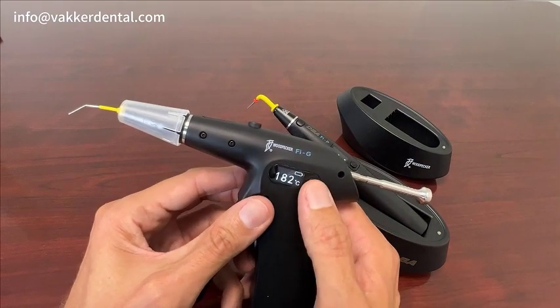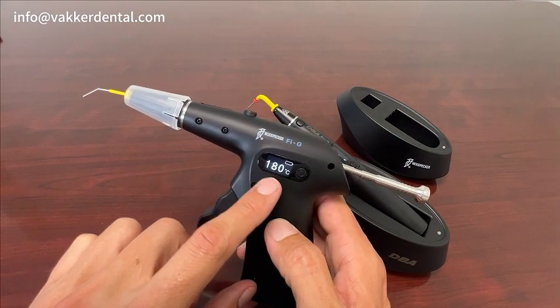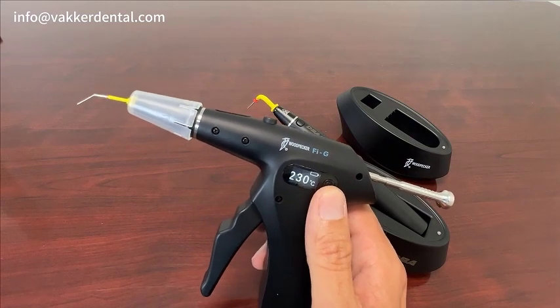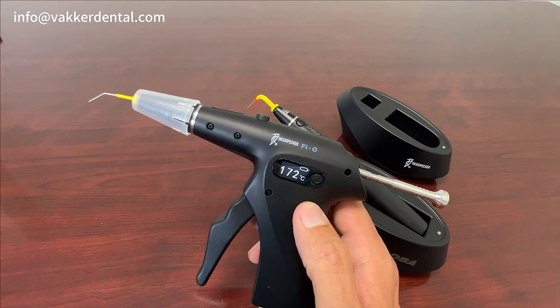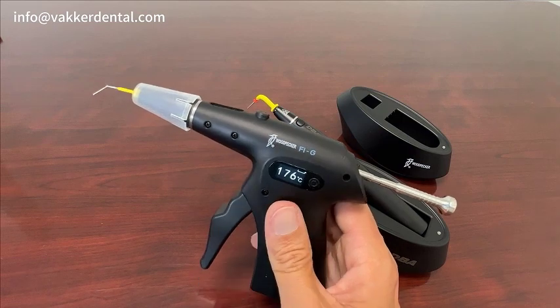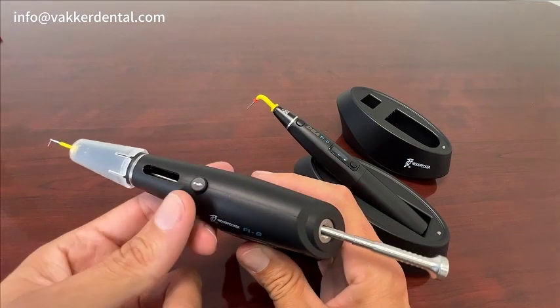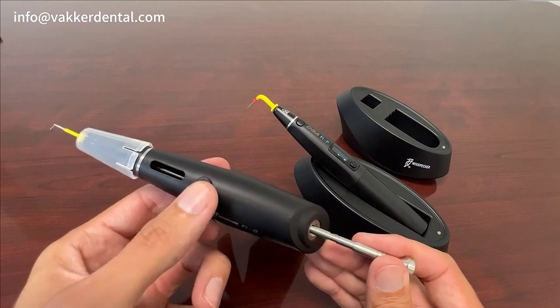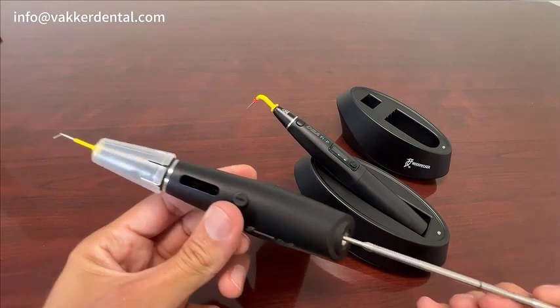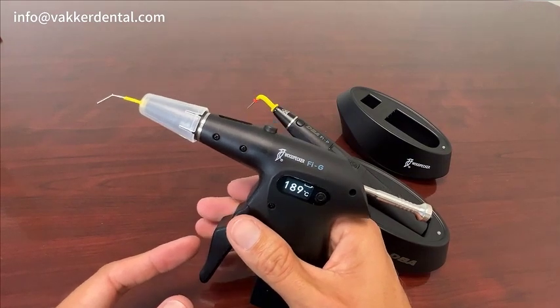This is very basic — just press to set your temperature. Once it gets up to operating temperature it'll show you where you're at. It looks like it's already at 180; if we jump it up to 230 you can watch it climb. This is going to fit any standard gutta-percha pellet. When you're ready to dispense, press the ramming rod button and it'll pull out. Then you can use your cleaning tools to clean it out or drop new pellets in — as simple as that.